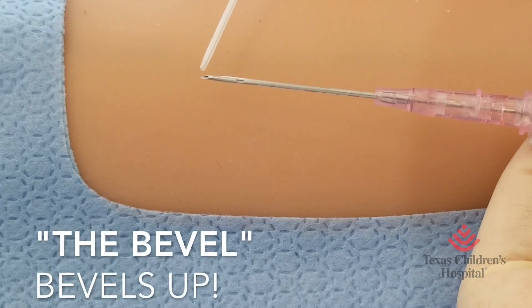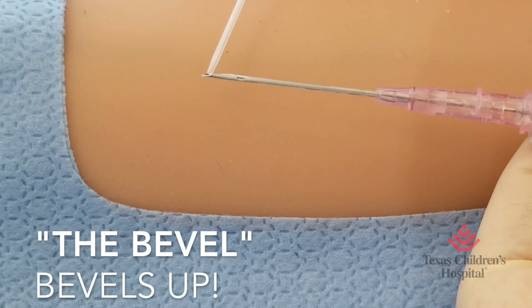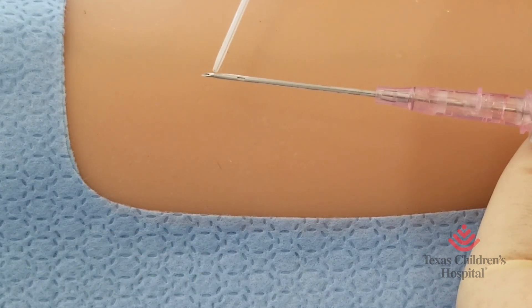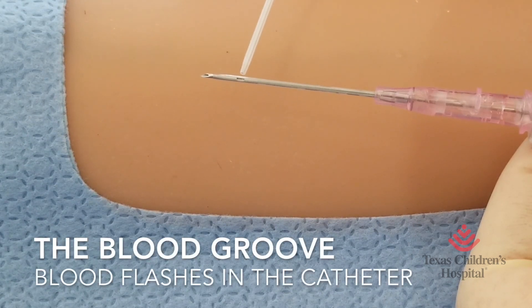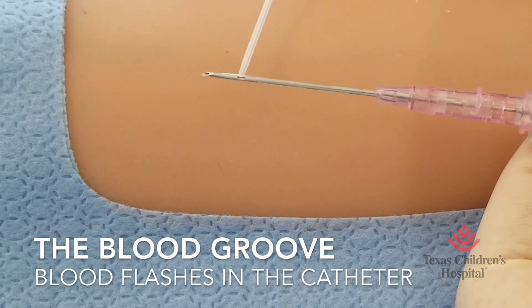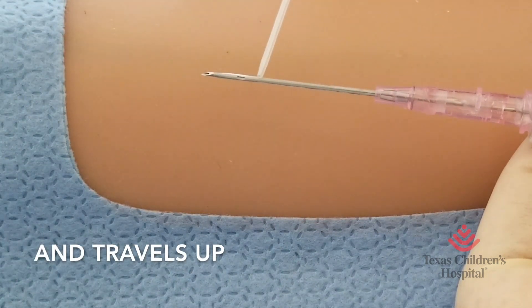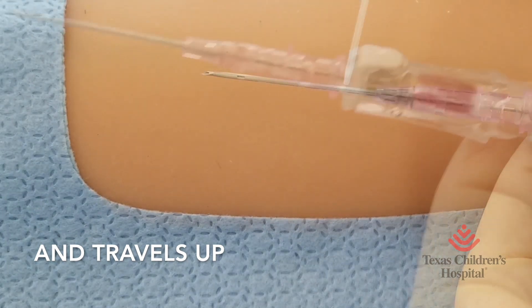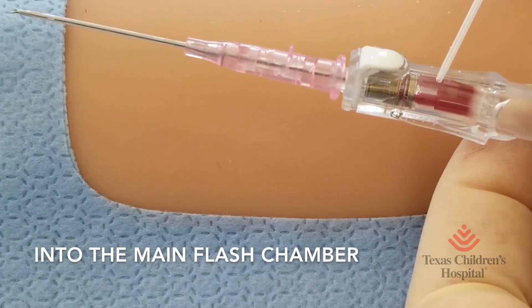Common IV catheters have a bevel which should always face upward upon insertion. This is where we see the first flash in this type of catheter. The blood travels upward from here to the main flash chamber.